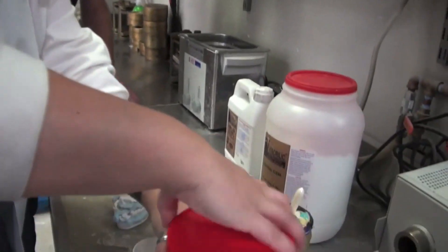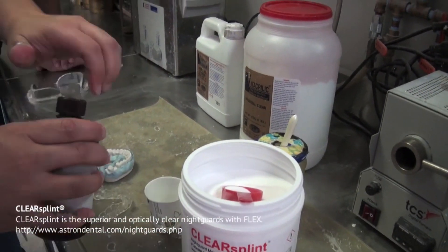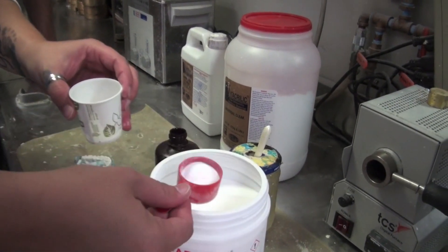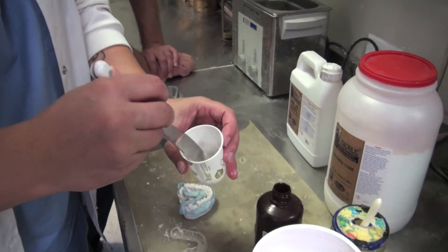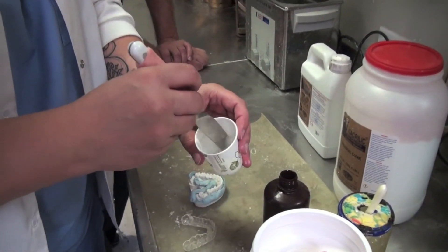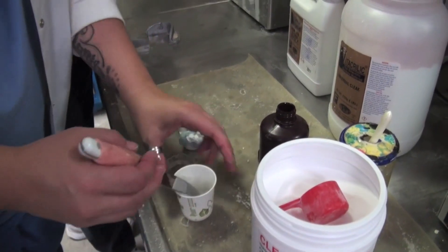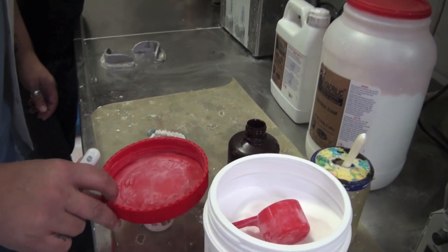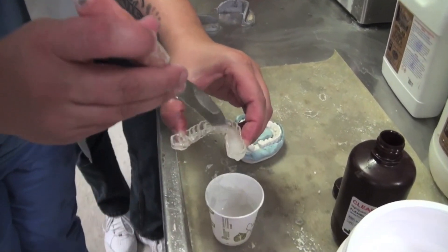This is a different material — which is clear splint. You always want to add the monomer to the powder — powder to the bottom always. Same technique as the hard acrylic. Because if you put it in now it's just going to run everywhere; you want it at more of a set stage. But you can't use too much powder or it'll be cloudy — this way it's still crystal clear. We're going to let it sit for a moment, then I'll put it on the vibrator because I don't want to trap any air between the layers, because the bubbles will show.